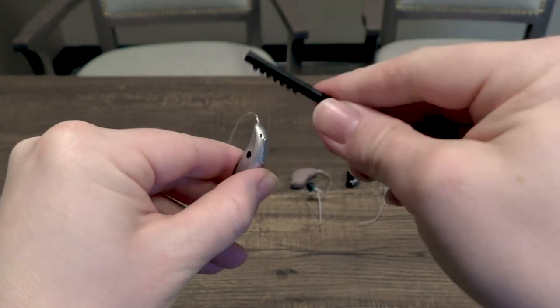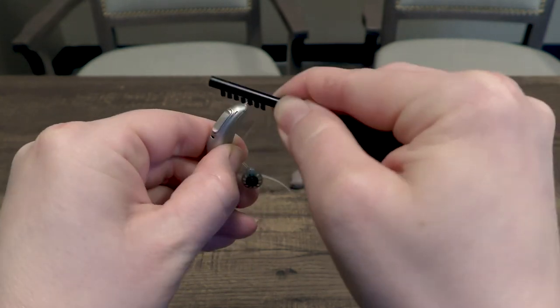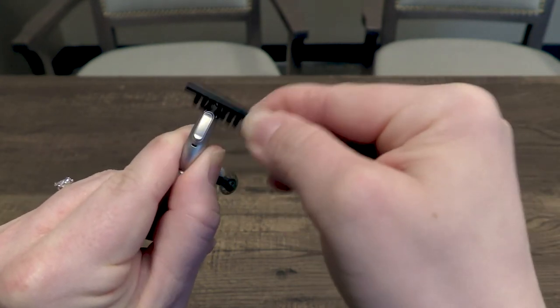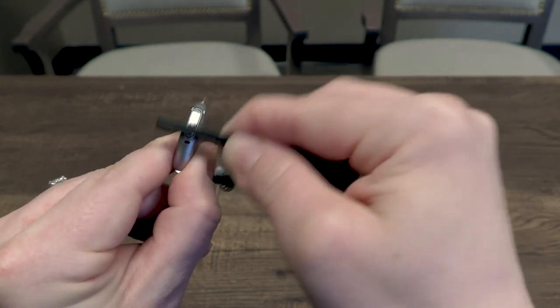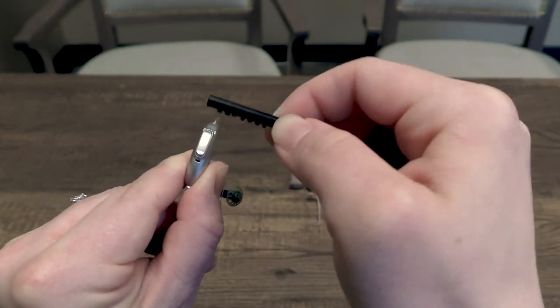Brush those microphones out. You want to make sure you're doing this every night to keep those microphones clean and free of debris because debris can build up on those microphones over time. And that is how you can keep your hearing aid microphones in tip-top shape and hearing great.